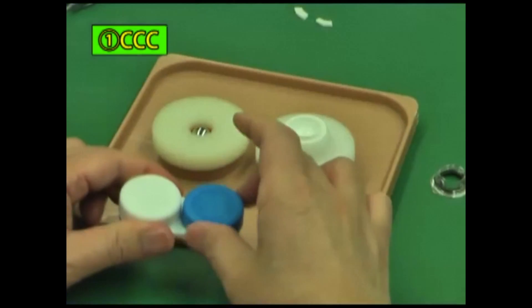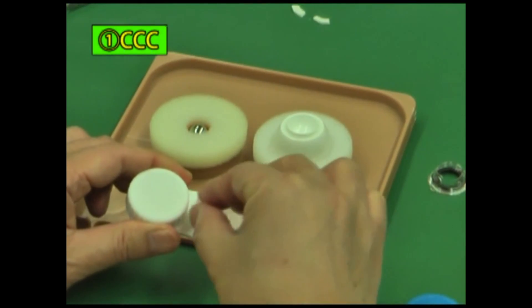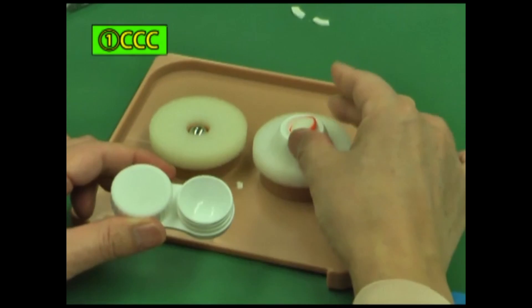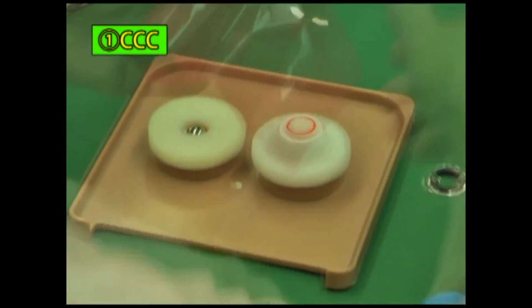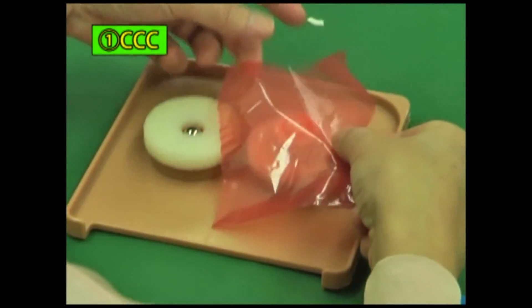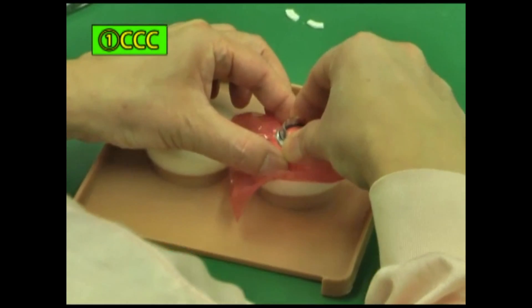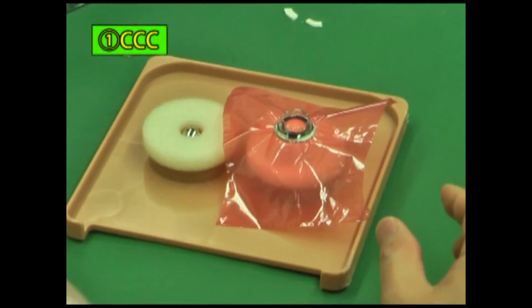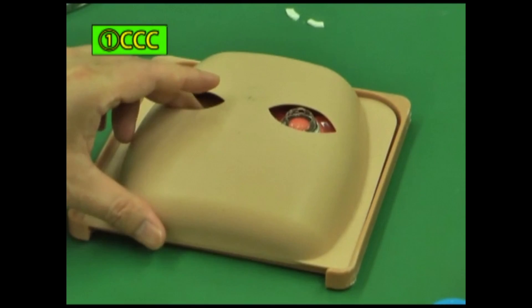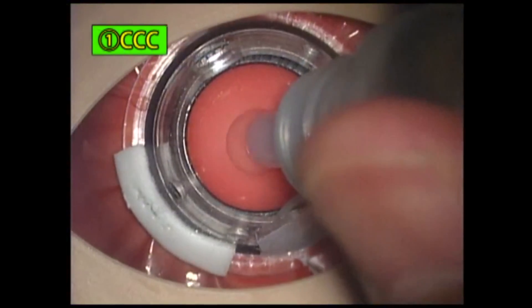One: practice of CCC. The setting. Open the container and take out the posterior capsule cup filled with wheat clay, then set it in the sclera part. Cut off a piece from the roll of anterior capsule film and attach the film to the wheat clay. Fix the film by fitting the cornea iris part to the sclera part. Place it on the base and set a mask. Put a drop of viscoelastic on it.